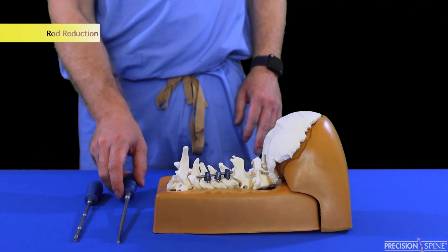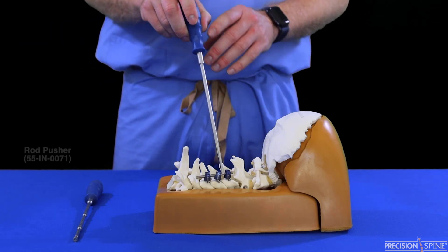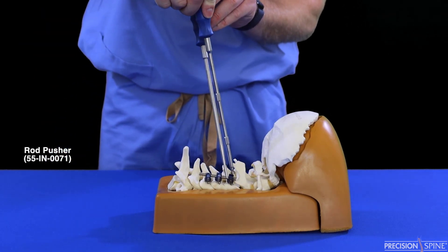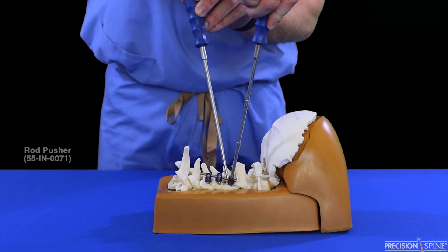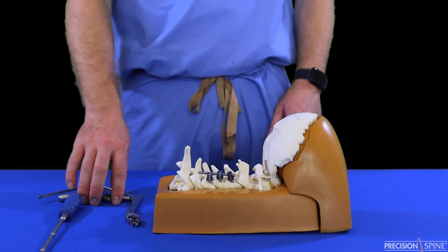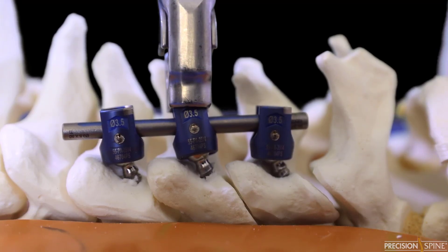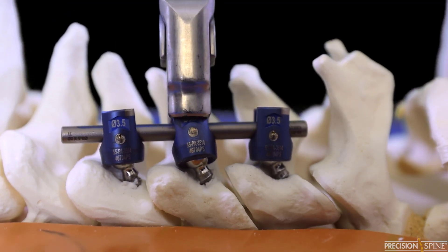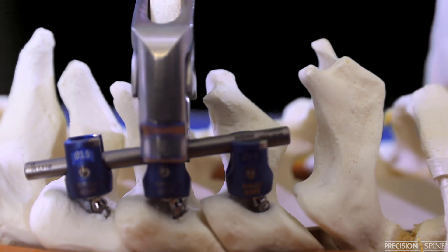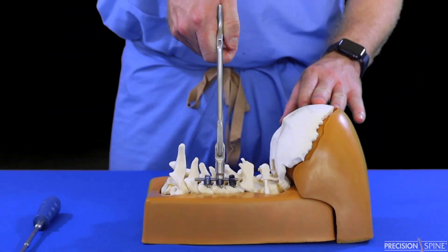Step 3: Rod reduction. There are four methods for rod reduction. The rod pusher is used by aligning the rod in the indent of the pusher; pressure is applied to reduce the rod into the tulip. The rod reduction gun is used by placing the gun over the tulip rod construct. The reduction gun should be secured and locked onto the tulip. The rod is then reduced by squeezing the trigger.